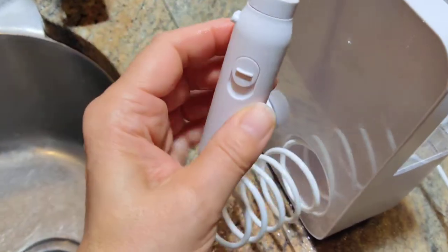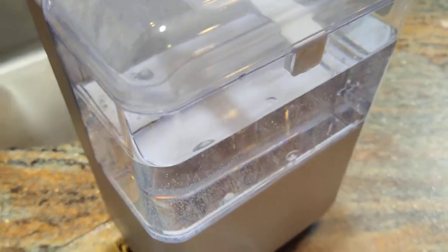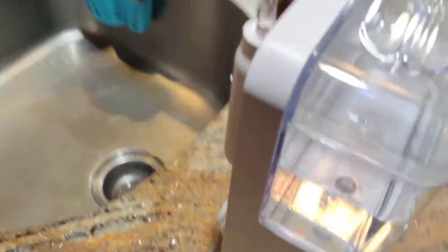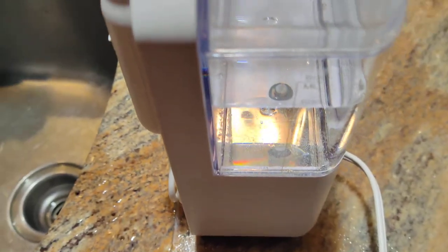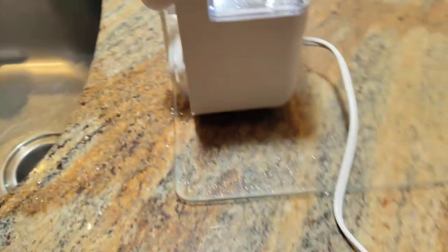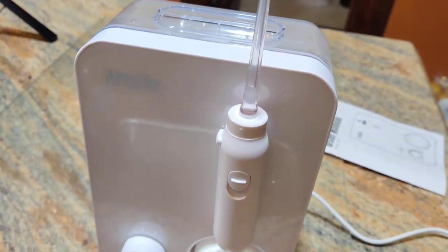Very nice. Like I said, it's got a nice large tank. I love the magnetic thing to store it. This is good for at least one time around. With my previous one I would fill it up twice because I like to do a really good job, but this one's enough just to go one time around. It's got a decent length cord and it's going up in my bathroom and it's going to be used.